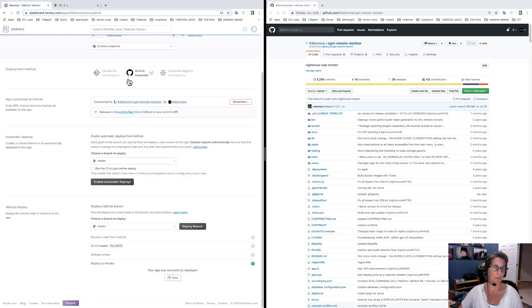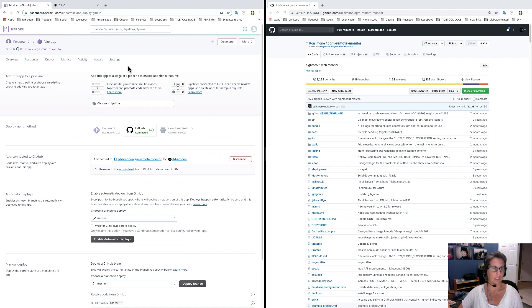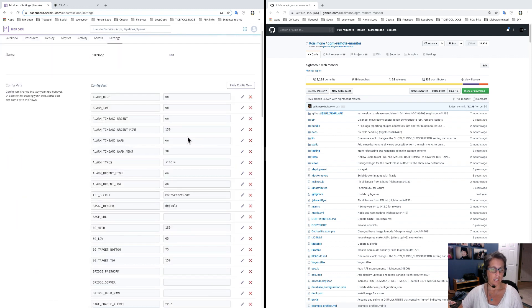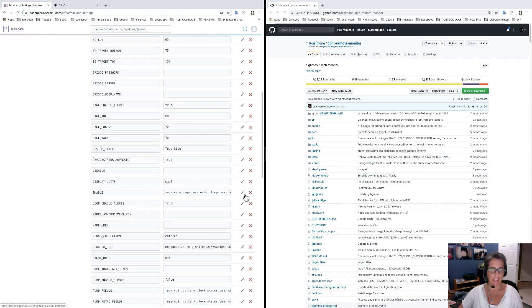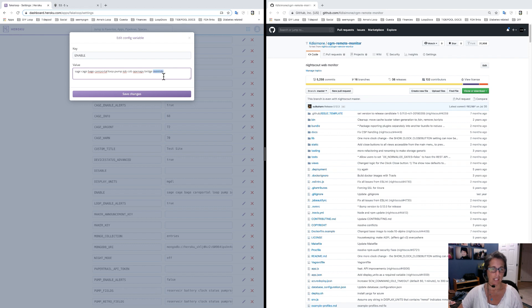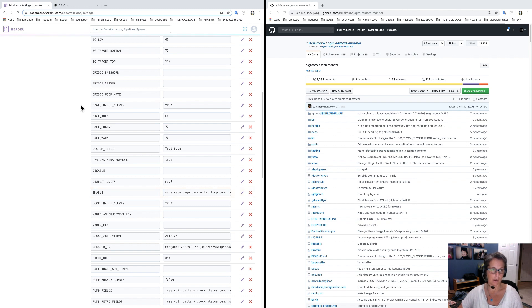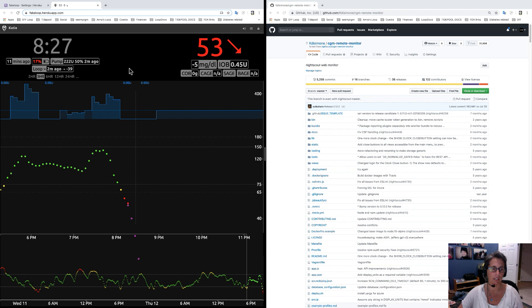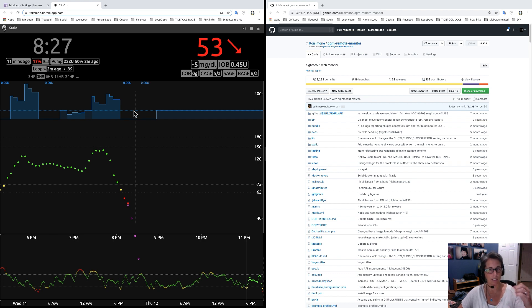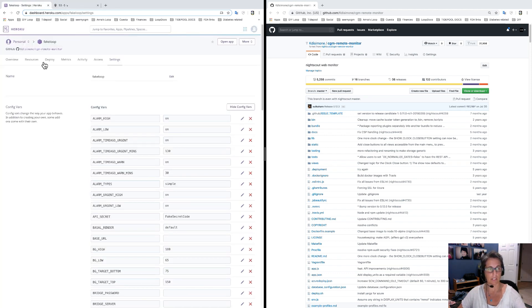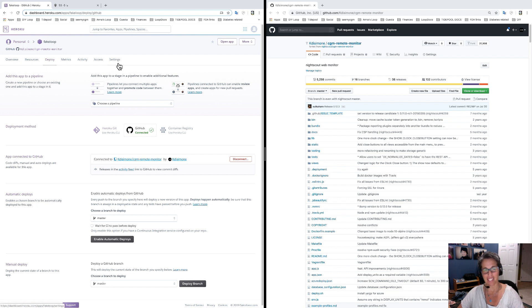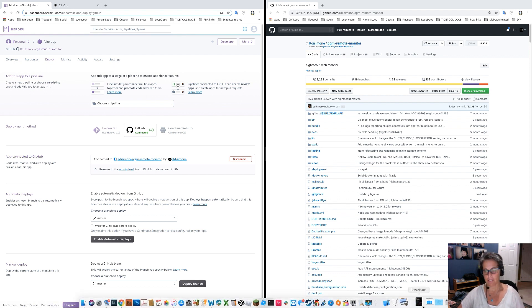One last thing, specific for Loopers moving from Omnipod testing or older versions who want to use overrides in the new dev branch: go to your Settings in Heroku, click Reveal Config Vars, go down to your enable line, click on the little purple pencil, and make sure you have the word 'override' in there. That's important because when you set an override in Loop, it will appear as a separate pill and let you know an override is active. So you're all set — you updated your GitHub, deployed that updated code, and put in override in your settings.